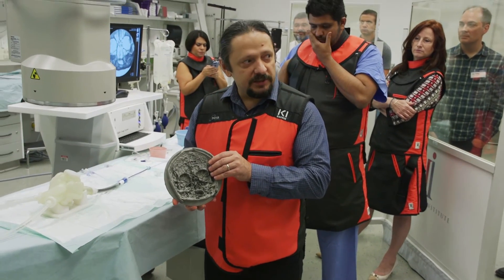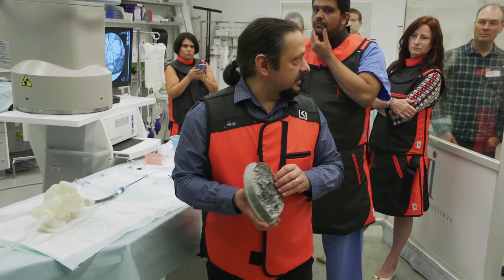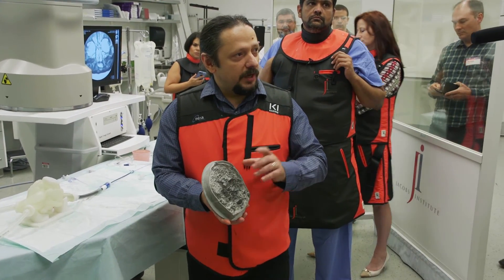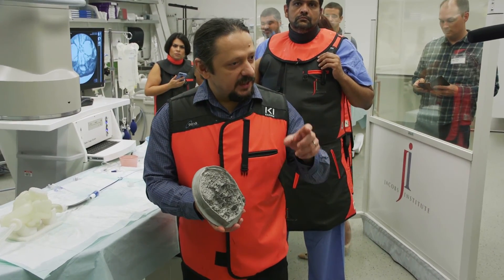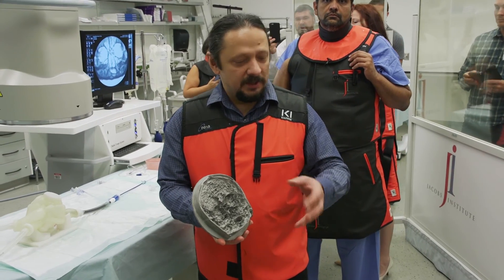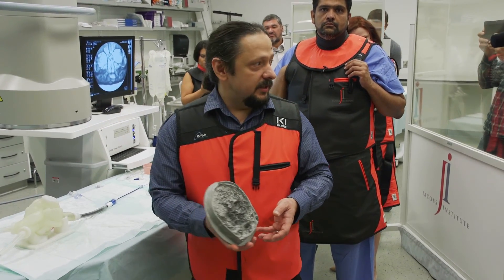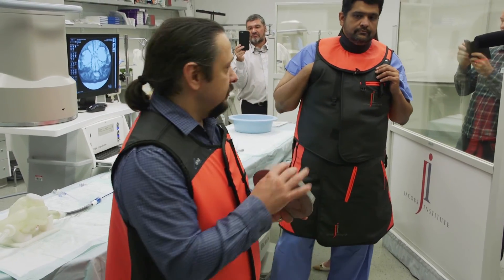Can you see a device? Are your markers on the stent properly done? Are you going to be able to actually see when you deploy the stent — can you see the strut? Can you see the device behind the anatomical noise or not? That's the idea of this.